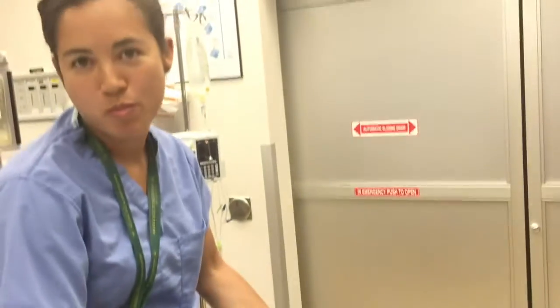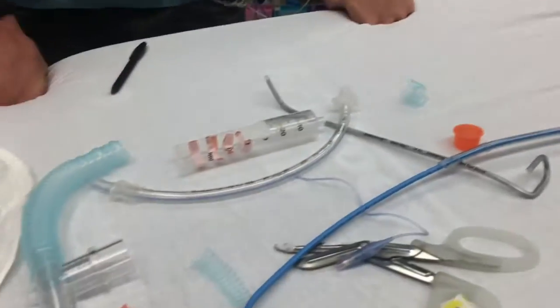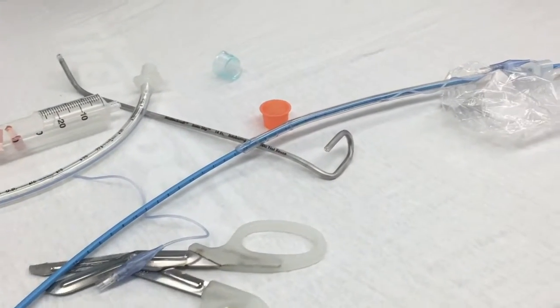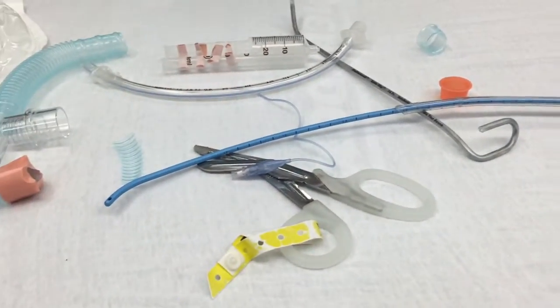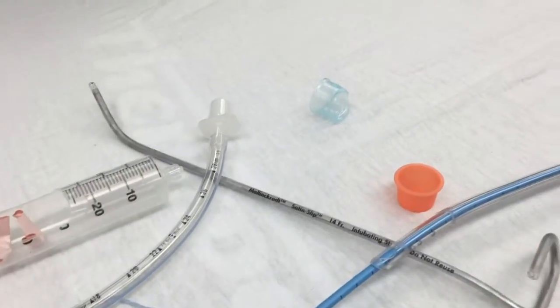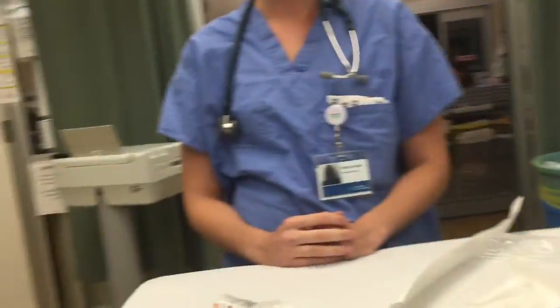Here we are in the trauma room with Sam, Sean, and Maria, just doing some MacGyver stuff. We're going to address the issue of where do you turn clockwise or counterclockwise based on where you are and with what device. I'm going to pass this over to John to do some video.